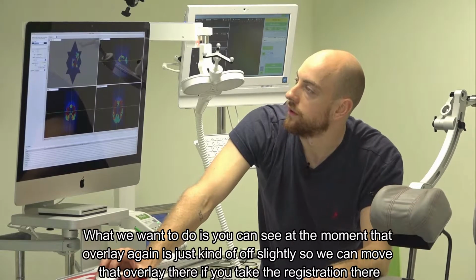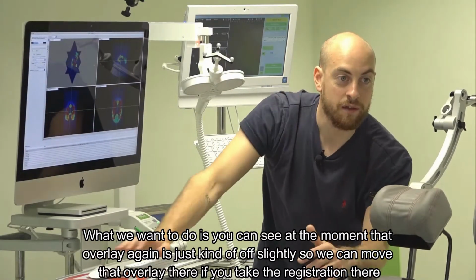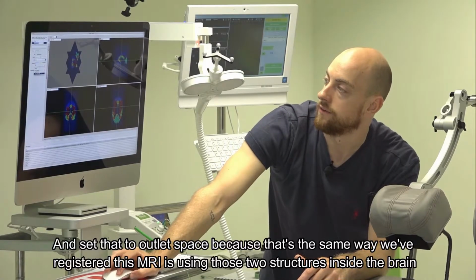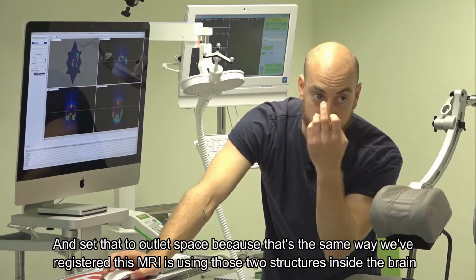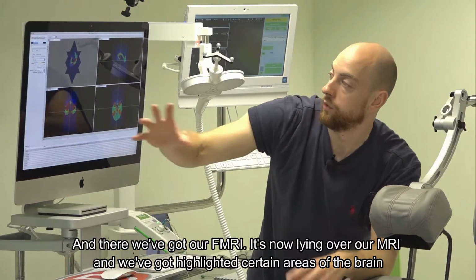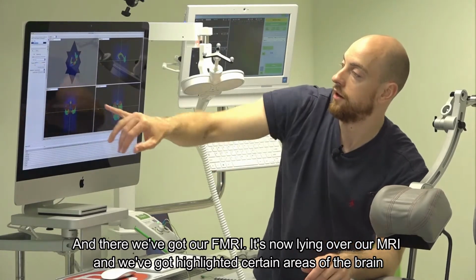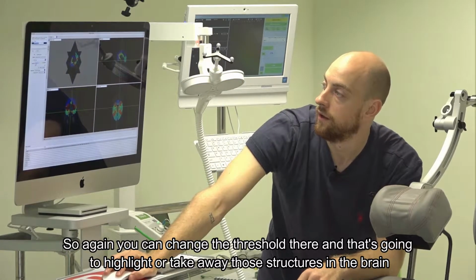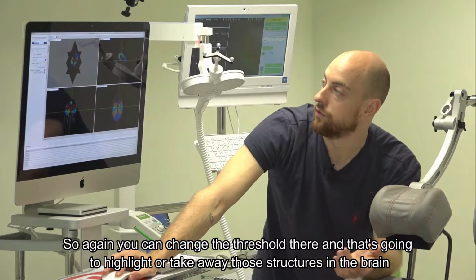Now what we want to do is, you can see at the moment that overlay again is just kind of off slightly. So we can move that overlay there. If you take the registration there and set that to Atlas space, because that's the same way we've registered this MRI, using those two structures inside the brain. And there we are. We've got our fMRI now lying over our MRI, and we've got highlighted certain areas of the brain. So again, you can change the threshold there and that's going to highlight or take away those structures in the brain.